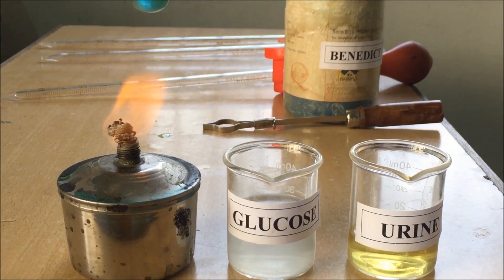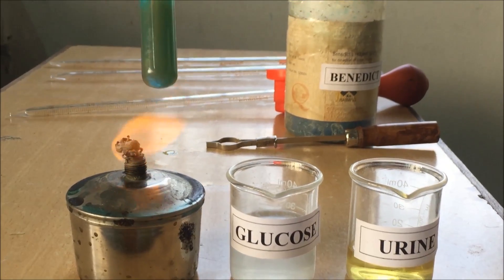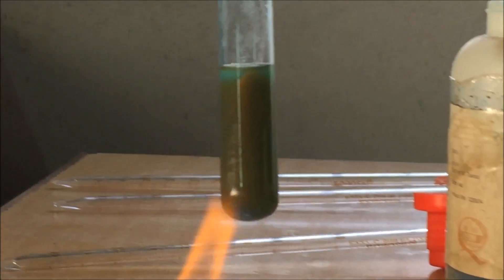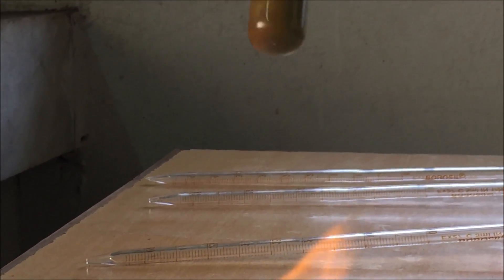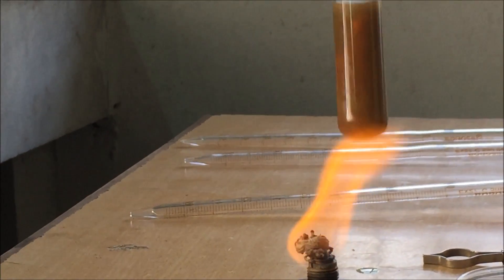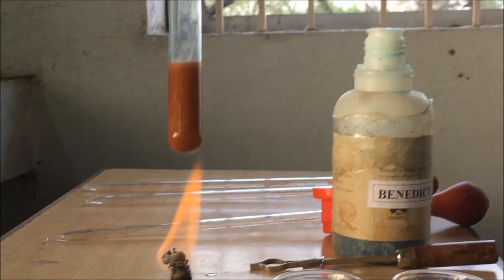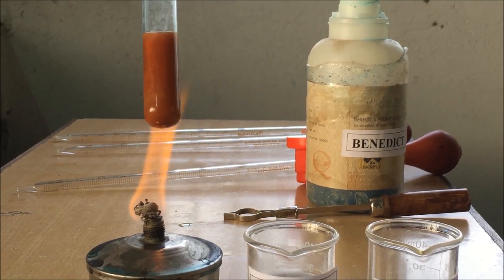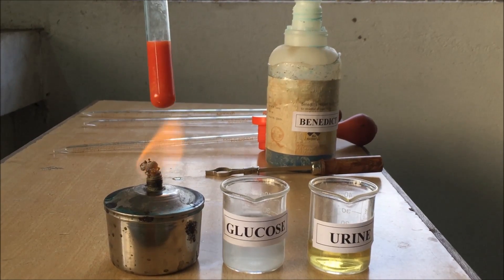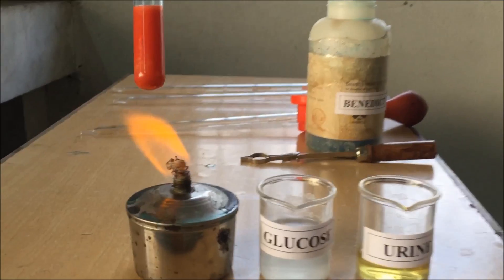You can see the color is slightly starting to change to green. Green color indicates 0.5 to 1% of glucose in the sample. On further heating, the green color is now turning into a slight orange at the top of the test tube. Continuing to heat, it starts to change to orange — a slightly orange-green mixture. With continued heating, this will change into a pure orange color, indicating the presence of glucose. Further heating will change it into a pure dark brick red color, which indicates more than 2%, up to 5%, of glucose in the sample.